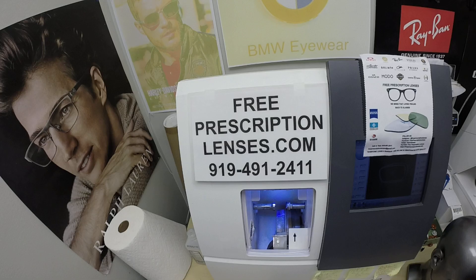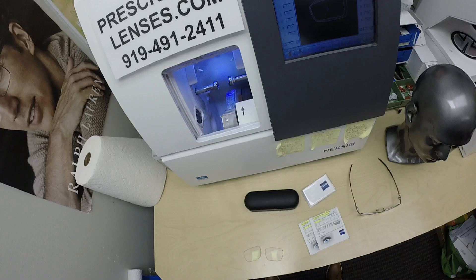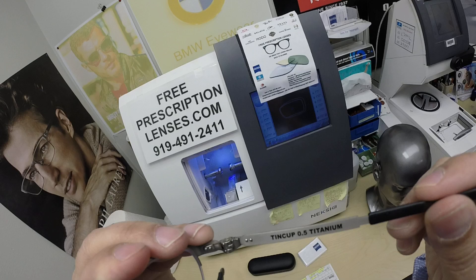Hello everyone, a special thank you to VJ in Boston, Massachusetts. This is freeprescriptionlenses.com, where everyone loves a bargain and no one is disappointed with quality. I am See More Better, but call me Mo Mo Better, because I'm gonna have you seeing mo better, looking mo better, and show everyone else how I bring that loving feeling back to glasses when I show you VJ's own Oakley 5099.